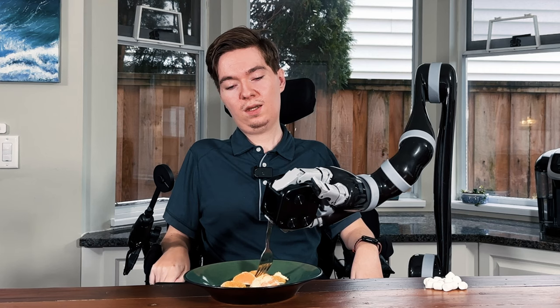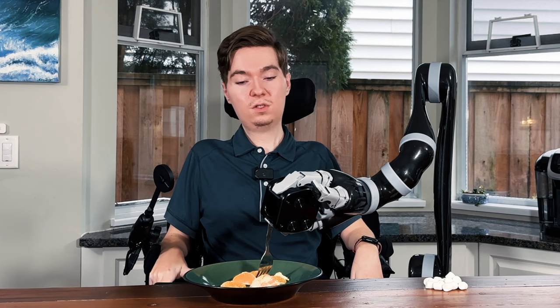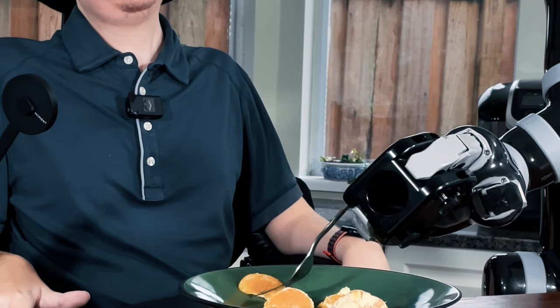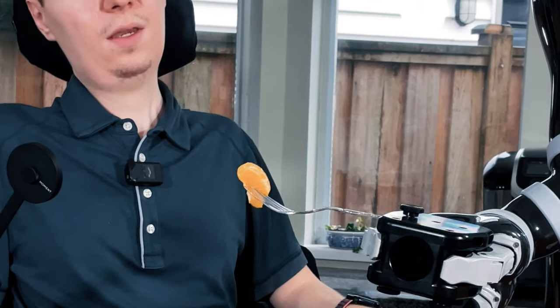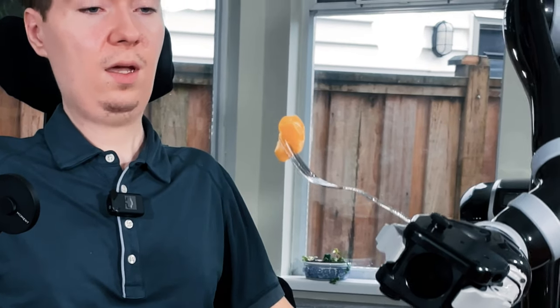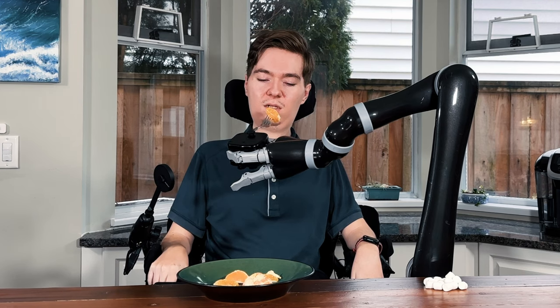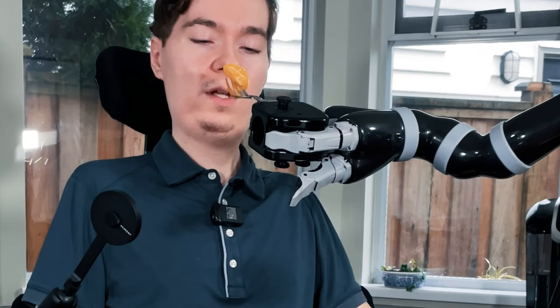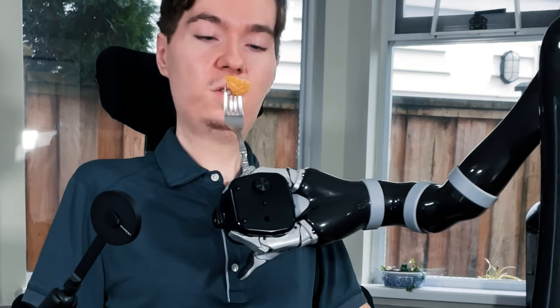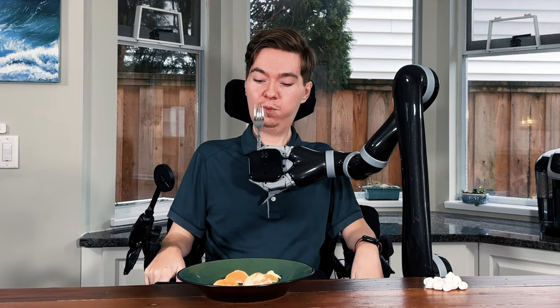I'm slowly going to come down and we've pierced our orange. Like we did with the oatmeal, I'm going to do some wrist rotation — that's just going to hopefully get it stuck on the fork. I'm rotating and there we go. Now that we've picked up our orange, I'm going to orient the fork upwards so that it's not sliding off during the transition from plate to mouth. I'm going to continue maintaining this upward point with the fork — actually I'm going to point the fork right upwards because I know that's going to work better for me personally. There we go — success.